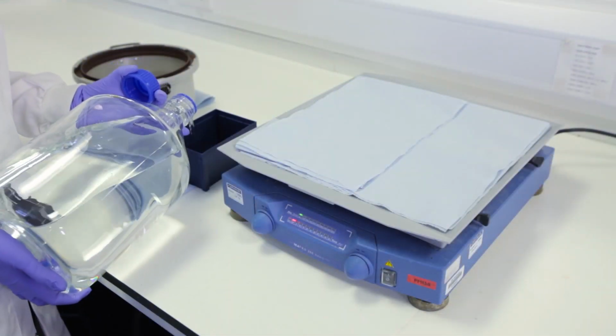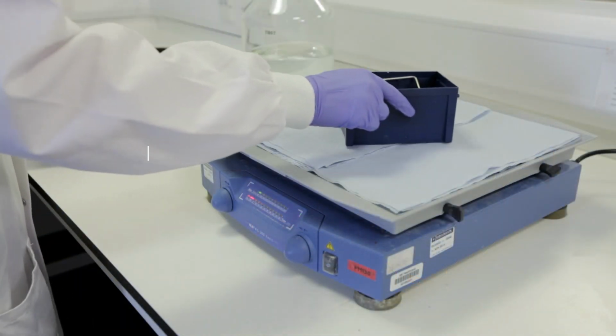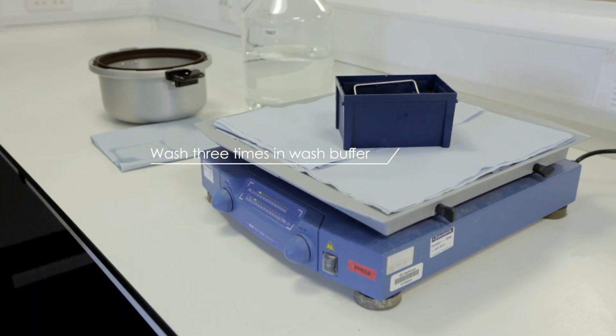The slides must be washed after the antigen retrieval process. Place the slides into washing buffer and gently agitate. Repeat this 3 times, changing the buffer after each wash.